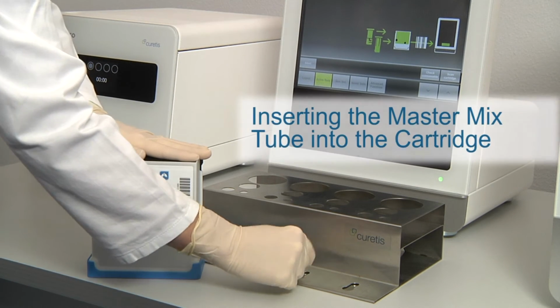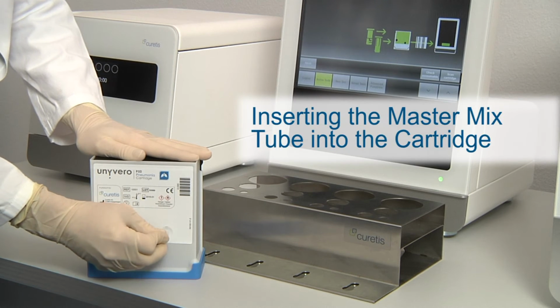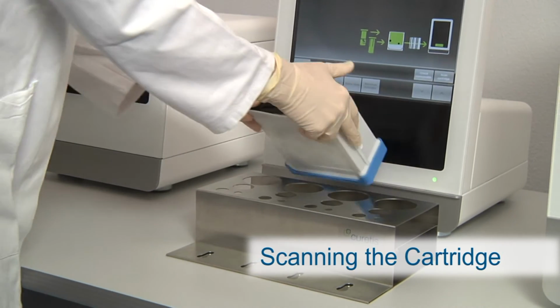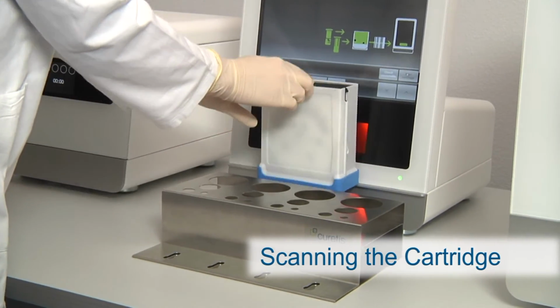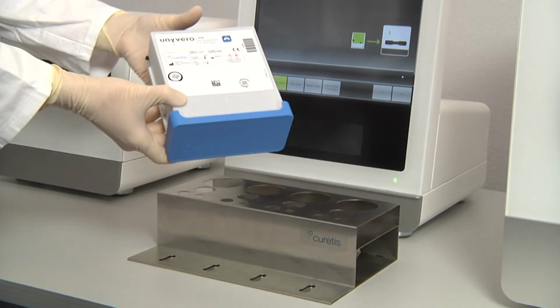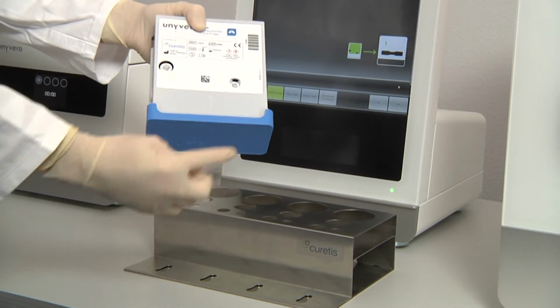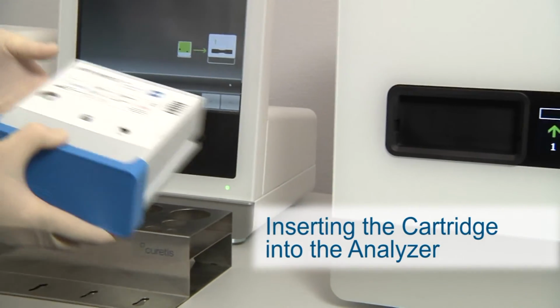After fully assembling the cartridge, hold the barcodes on the top side of the cartridge in front of the barcode reader of the cockpit and press Scan Cartridge. The easiest way is to place the cartridge on the little metal ledge at the lower end of the cockpit. It is very important that both the master mix and the sample tube are pushed deeply enough into the cartridge so that the inner parts of the cartridge can be processed inside the analyzer.